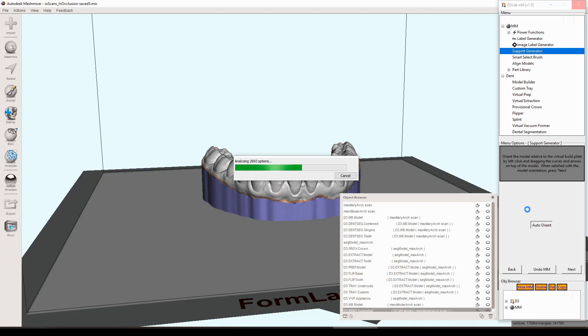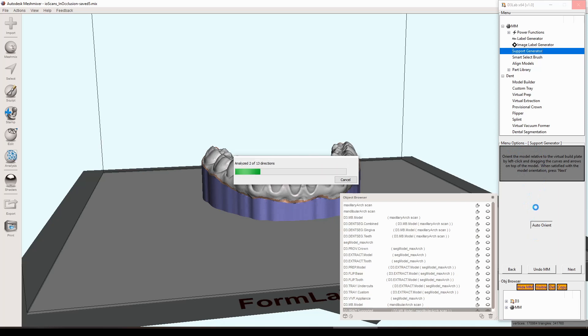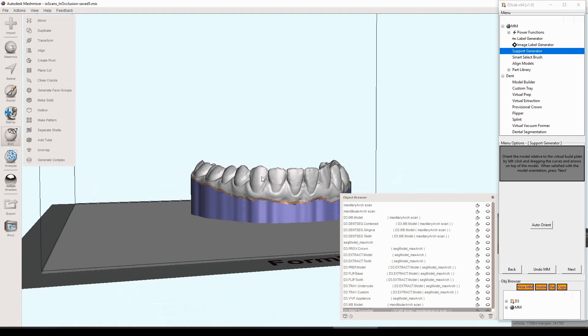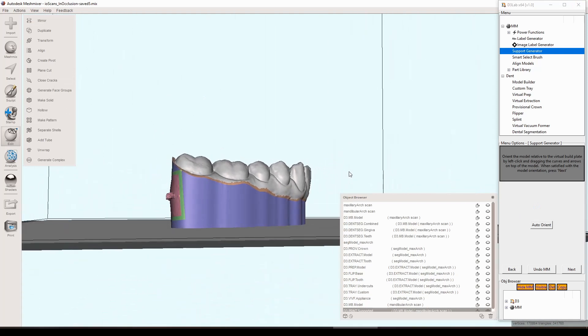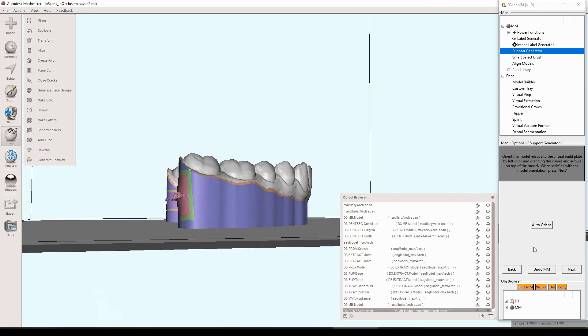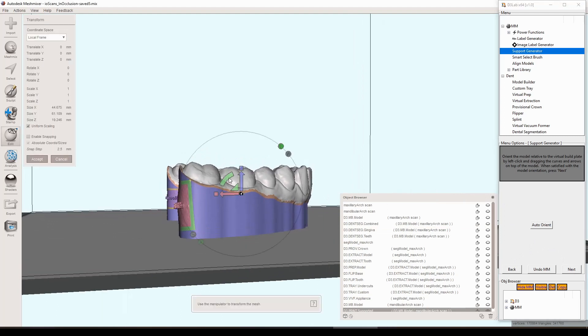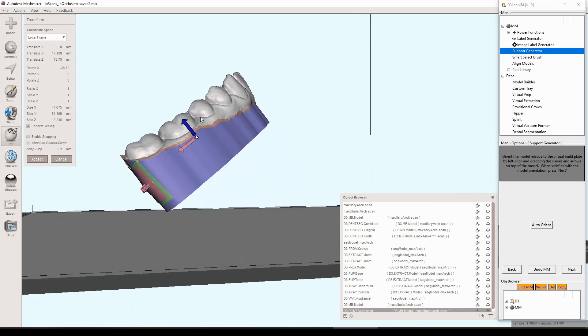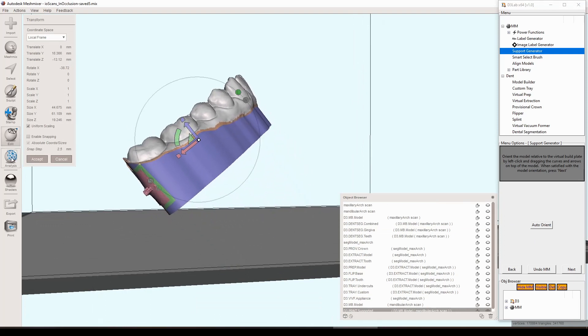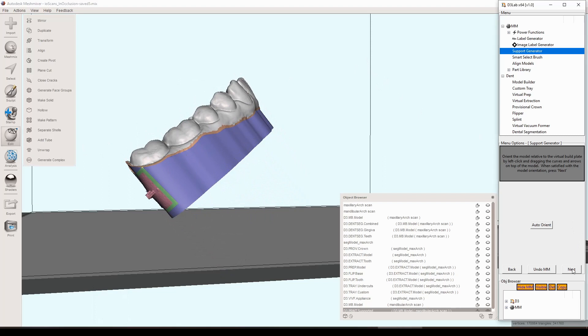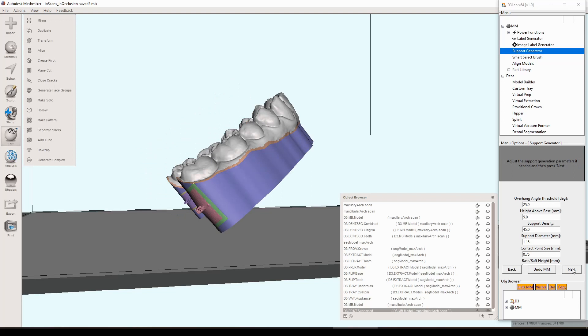This first button here on the initial start of the tool, it says auto orient. So this is again another function within mesh mixer that takes the model that you have and it attempts to orient it to the printing build plate in such a way that it reduces the amount of overhangs to the maximum ability. And that's built into mesh mixer so I just utilize that function. In this case it looks like it just wants it flat. I kind of get some on and off results with this. I feel like a lot of the time it just defaults to this flat, but a lot of the time it will kind of angle it in the exact way that you'd see in like preform or something like that. You can also manually do this as well if you know that you want this angled and kind of just want it at this height above the build plate.